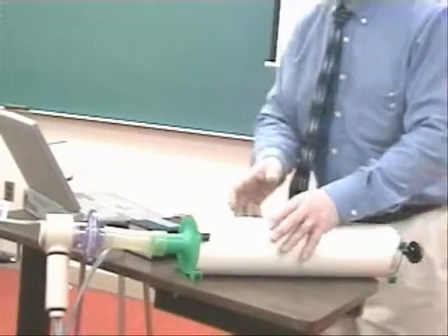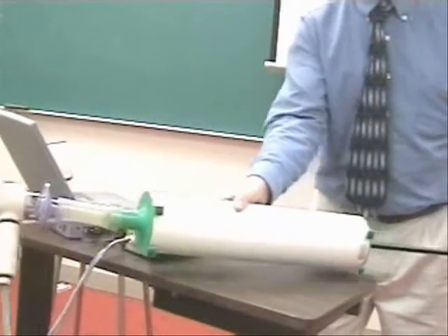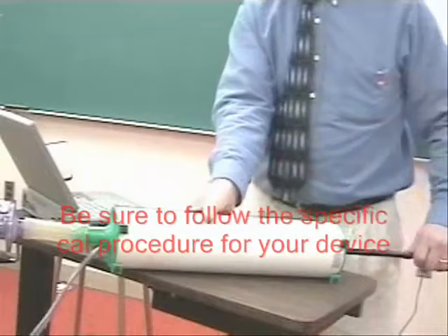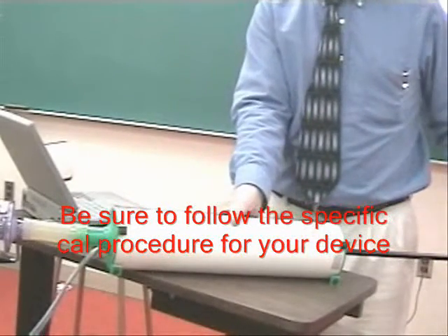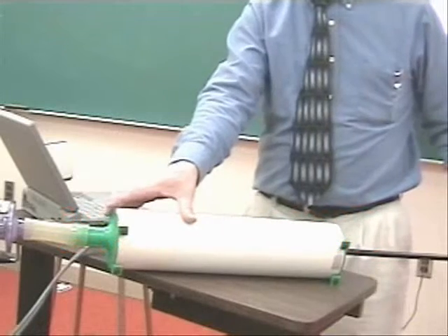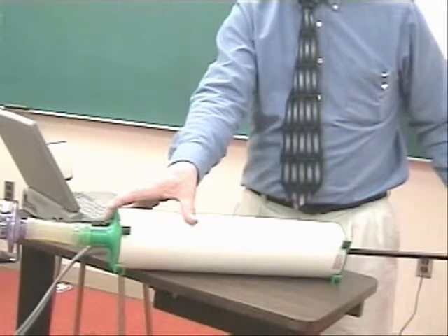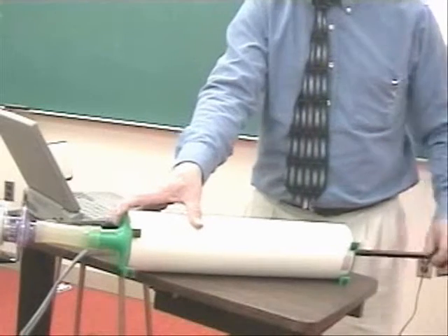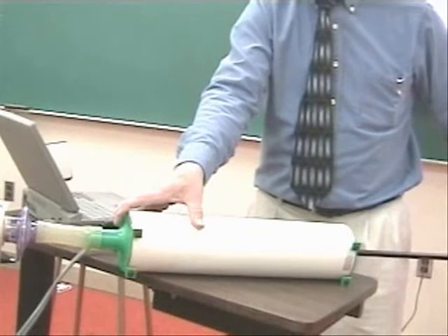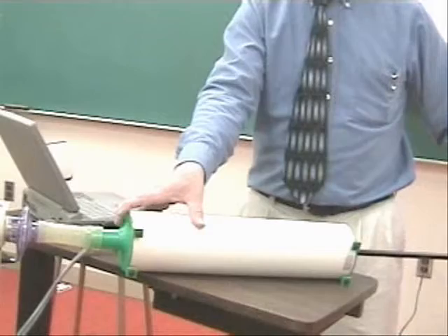We're going to pull out the handle, and then press enter to start the test. It says maintain flow, zero flow, push in the handle, pull out the handle, maintain zero flow.